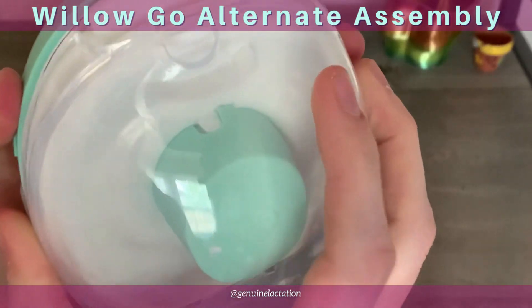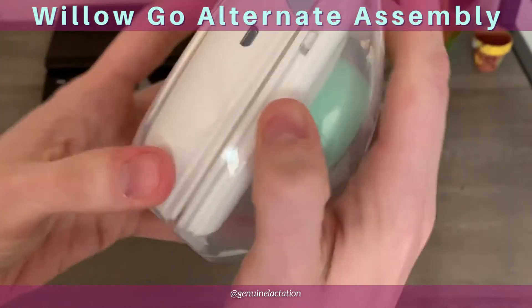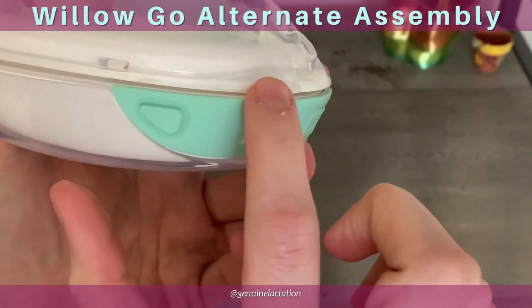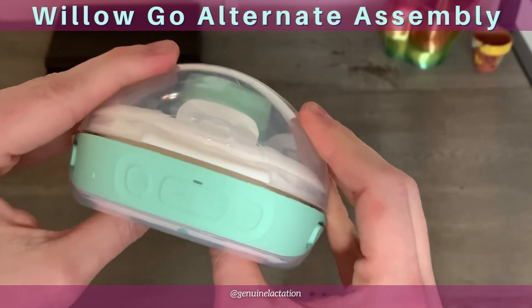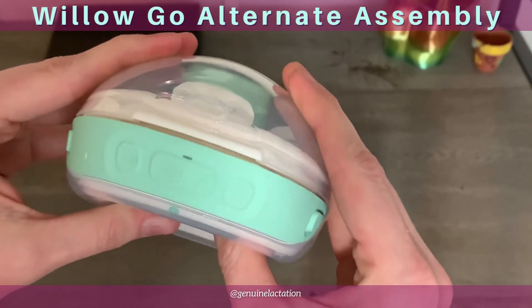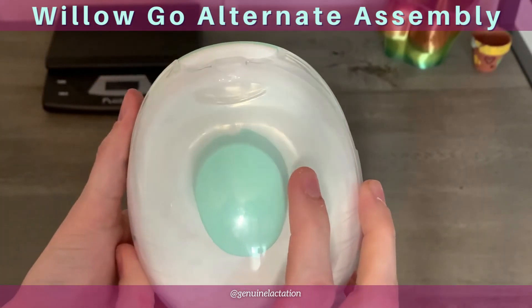Pull up and try again — watch. Now check here: all of this seal should be flat, there should be nothing out of place, everything should be nice and firm. If you push this together, there should be very little give or play. If you push on it and it's very spongy, then you've done it wrong and you want to start all over again.